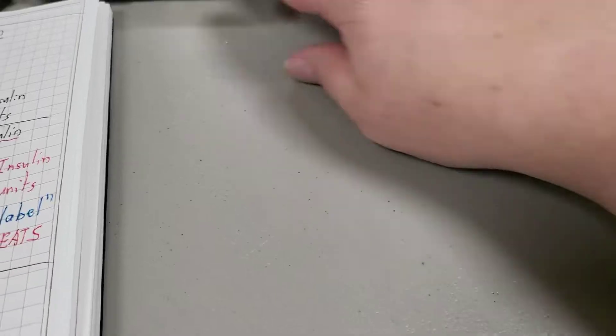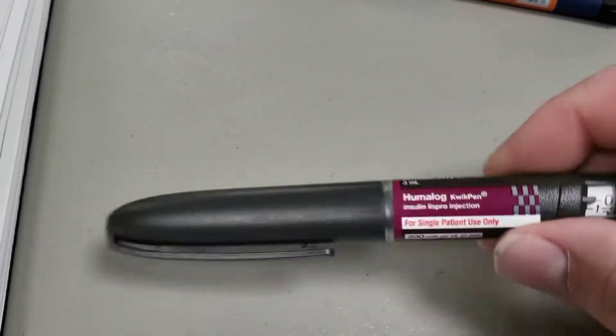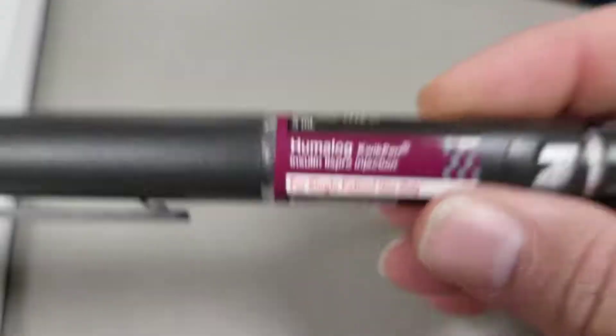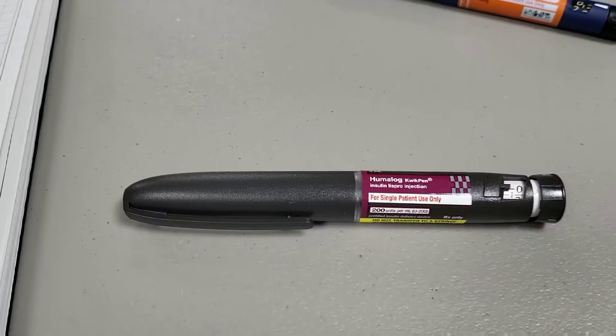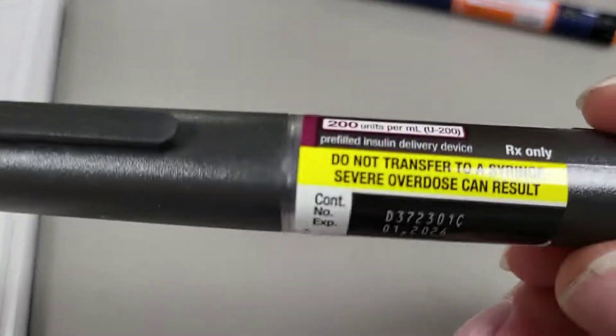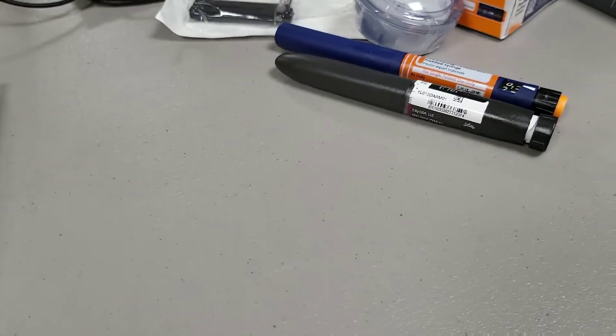It is common practice to use this stuff, Humalog U200. It's double concentrated. Notice it's got warnings. So let's talk a little bit more about this.